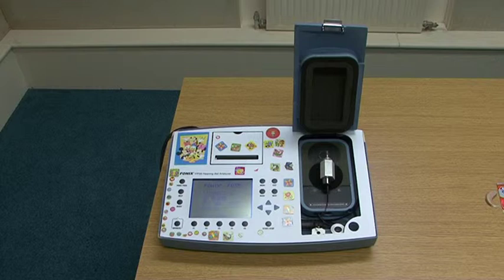The manufacturer, Fry, have improved the frequency analysis of the digital speech signal to take into account the special needs of hearing aids with feedback suppression algorithms that have sometimes interfered with the digital speech signal and the corresponding response curves displayed.